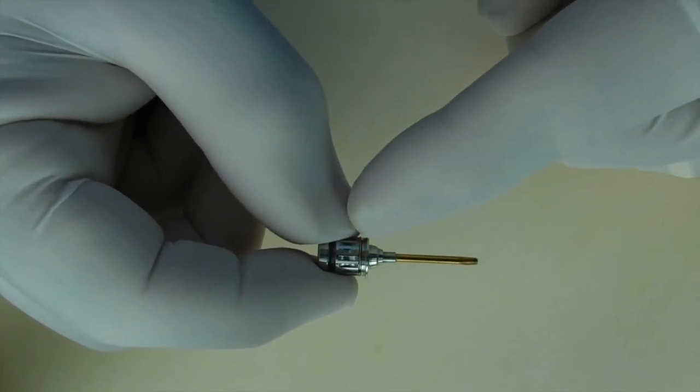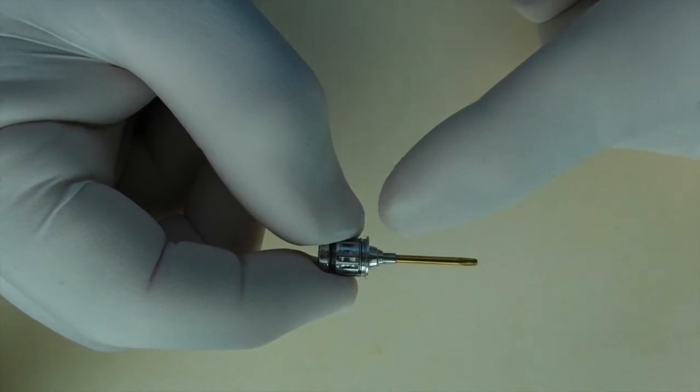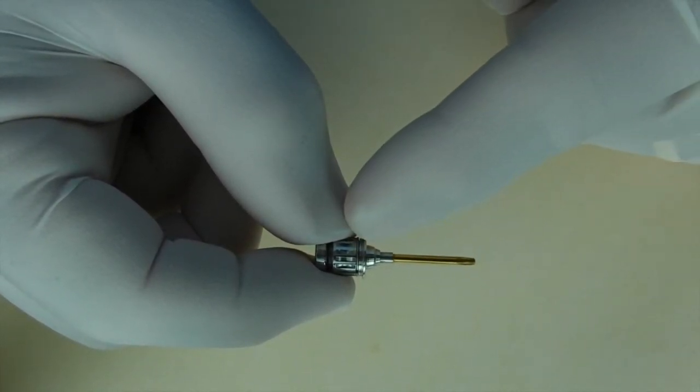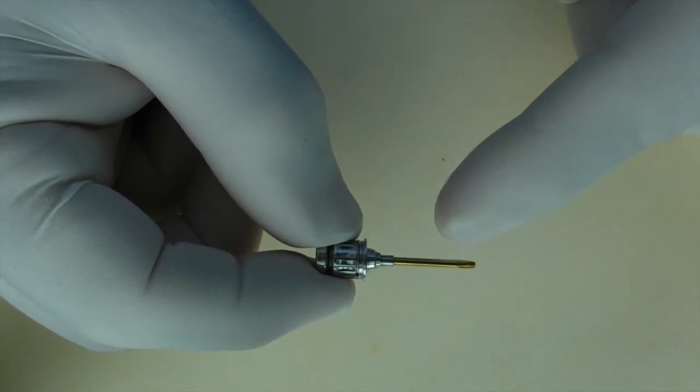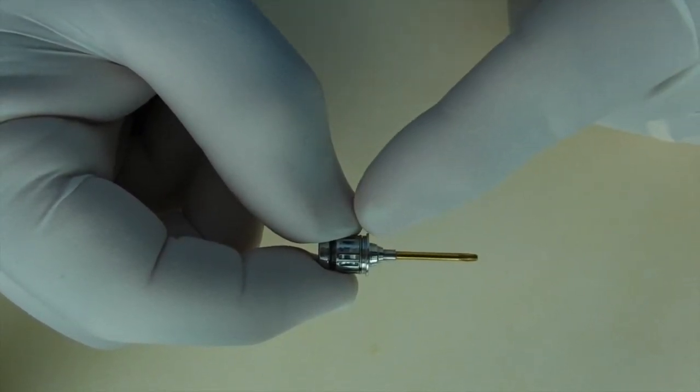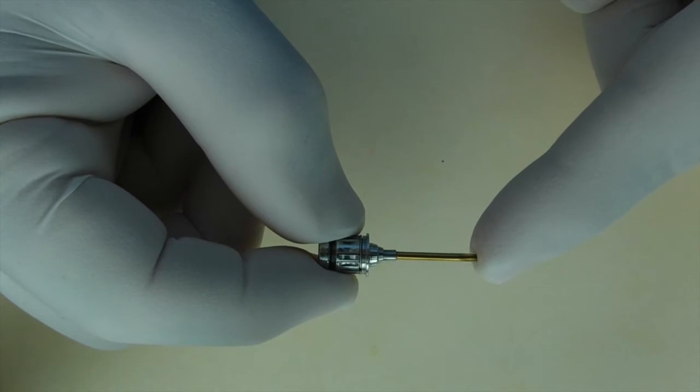And it's also very important that prior to using the torque wrench that you verify that these two are completely engaged. Don't assume that whoever used this system before you left this completely engaged.